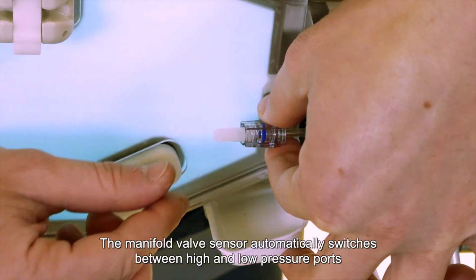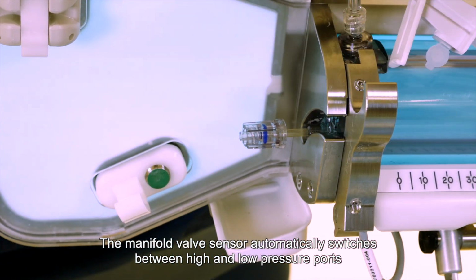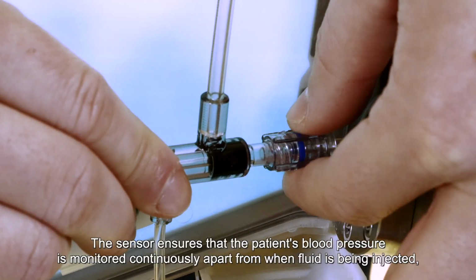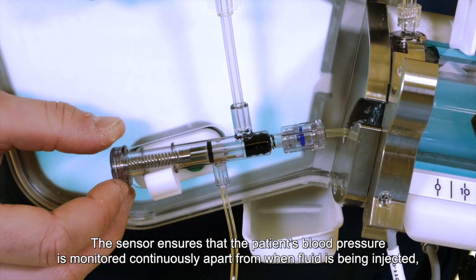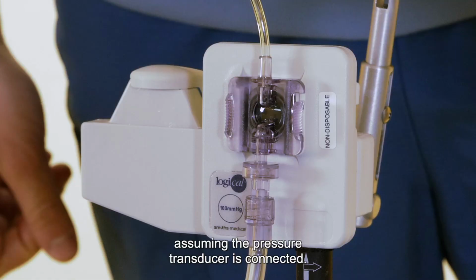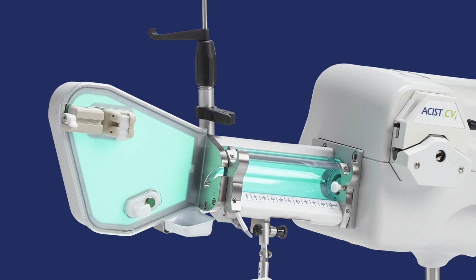The manifold valve sensor automatically switches between high and low pressure ports for delivery of contrast and saline. The sensor ensures that the patient's blood pressure is monitored continuously, apart from when fluid is being injected, assuming the pressure transducer is connected. Manifold valve sensor.